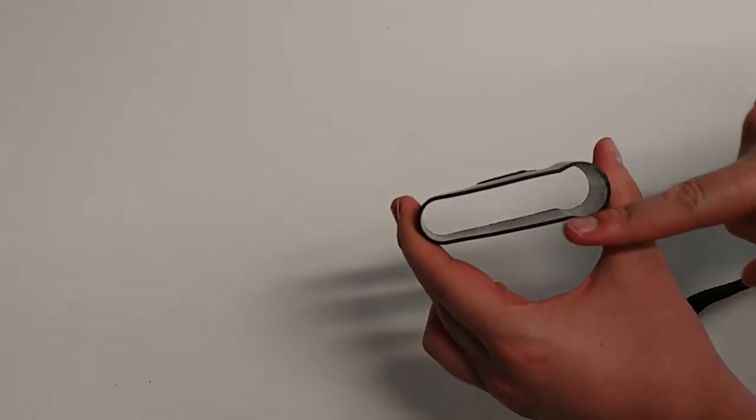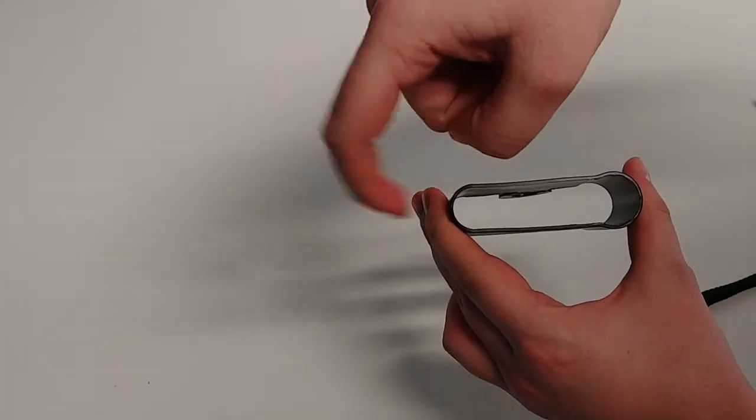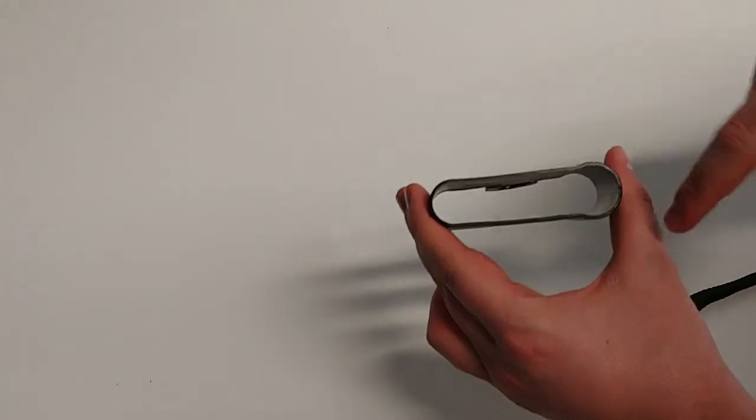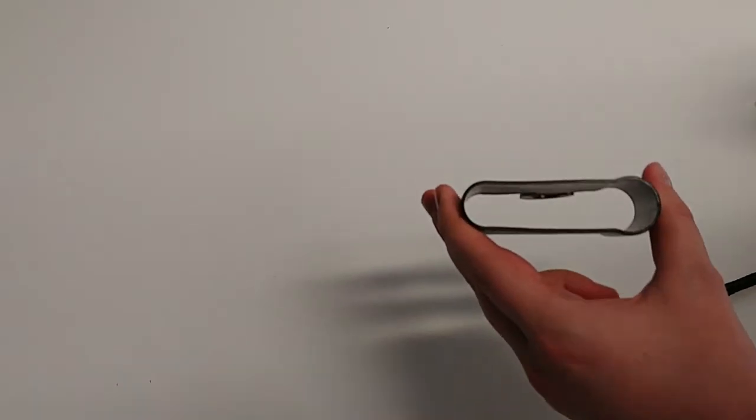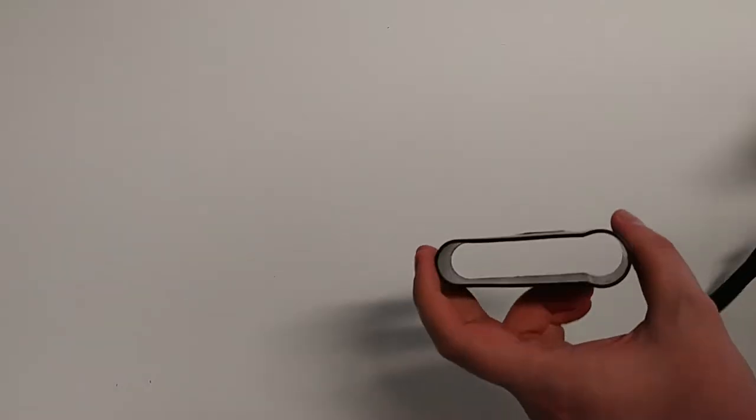I'll show you what it looks like without the cane in it. It looks like that. With enough pressure toward the center here, it'll bow. So all you'll need to do is just that in reverse to get the cane back together.